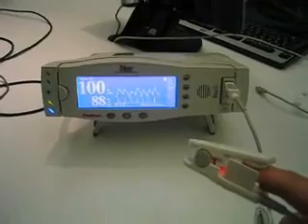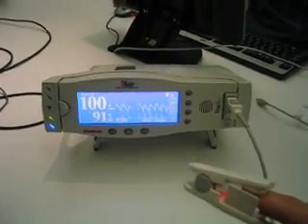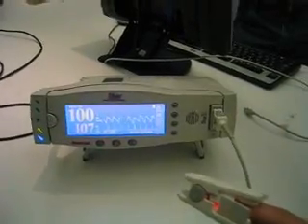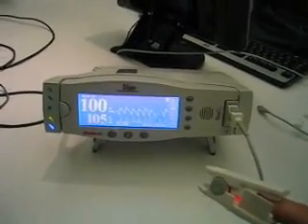Wow, it really goes up now. 95, 105 now, 107. That's cool, do you want to do it as well?